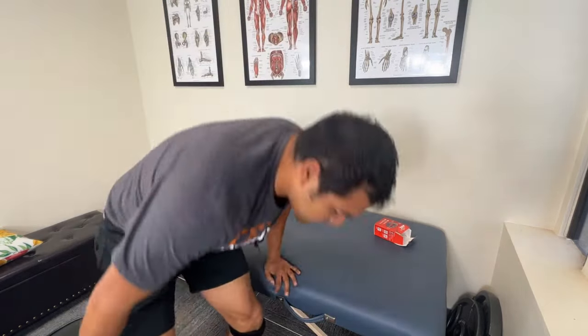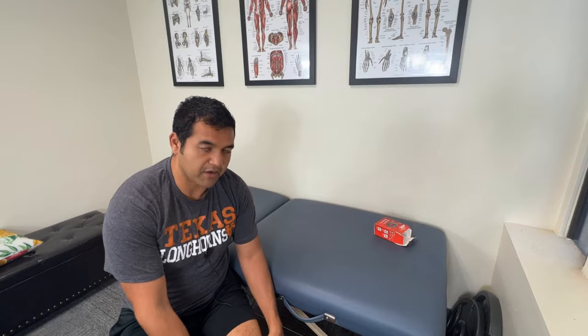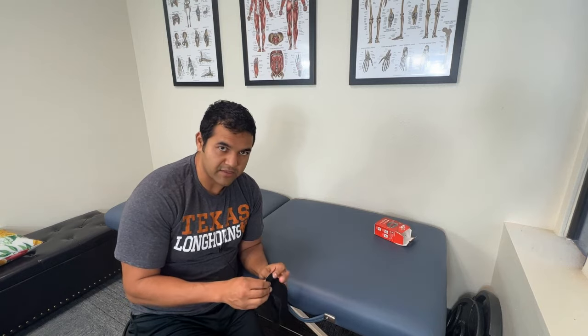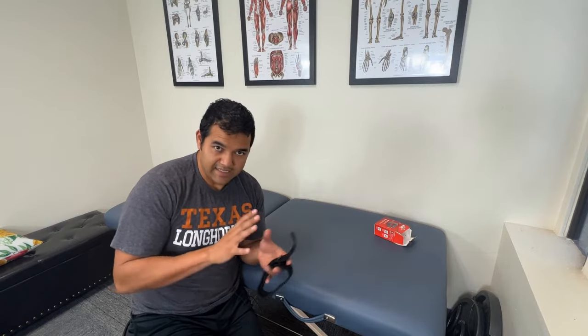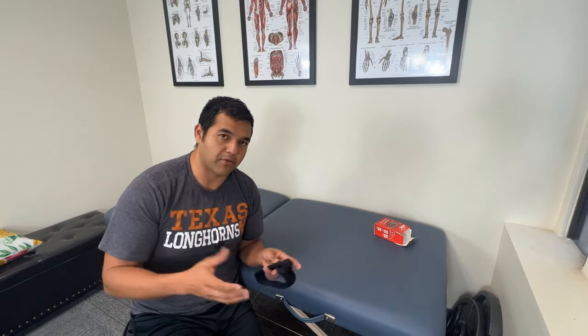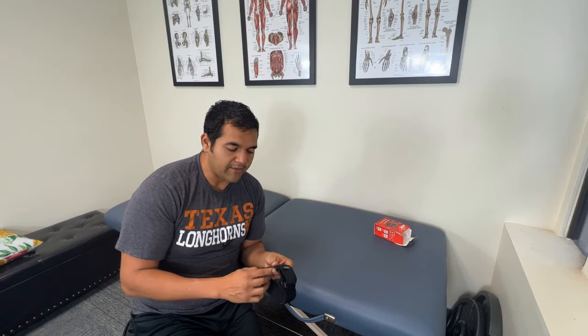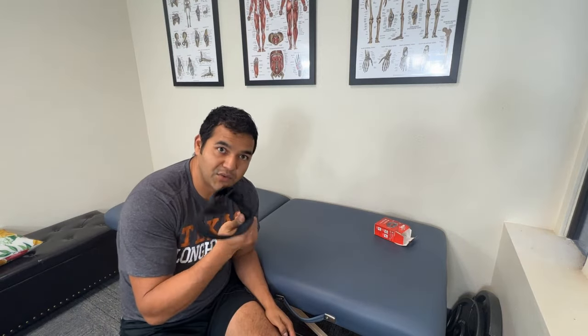To give you my honest Physical Therapist review: it's a good tool. I like it for people that are very active, especially runners, because you get that pain under the kneecap which is associated with patellofemoral pain syndrome. It's an overuse of the tendons — essentially a tendonitis of the patellar tendon. There are other causes of patellofemoral pain syndrome as well; it's a variety of signs and symptoms that come together to make the problem. It could be your cartilage behind the kneecap or the tendon below the kneecap. But if you specifically have pain in that tendon, this is a good tool to use.